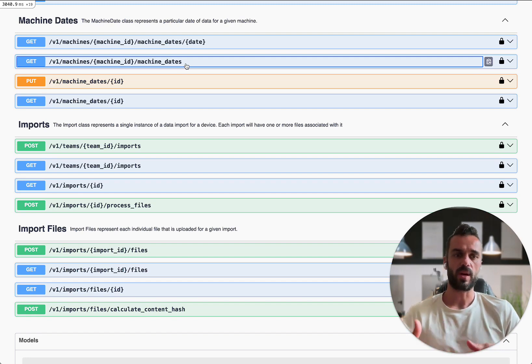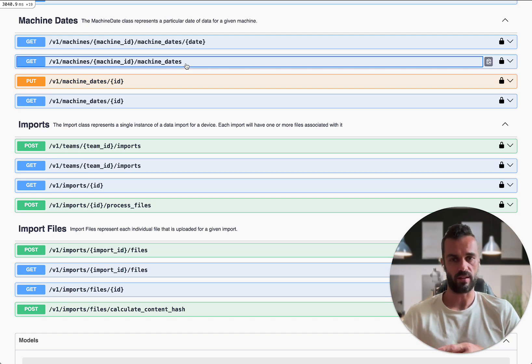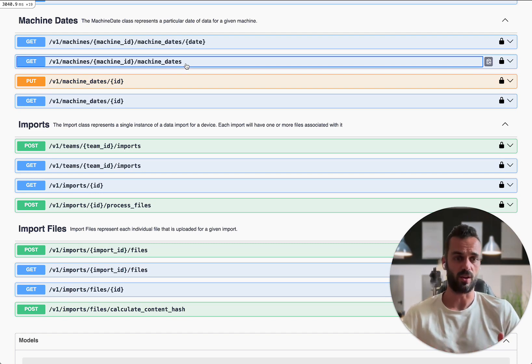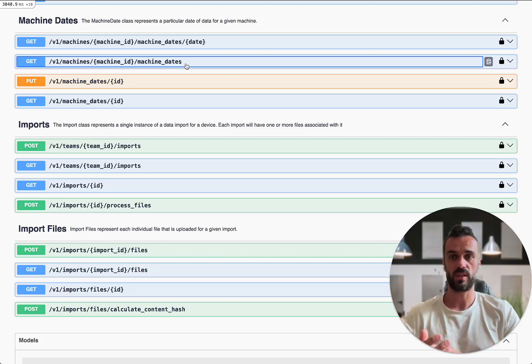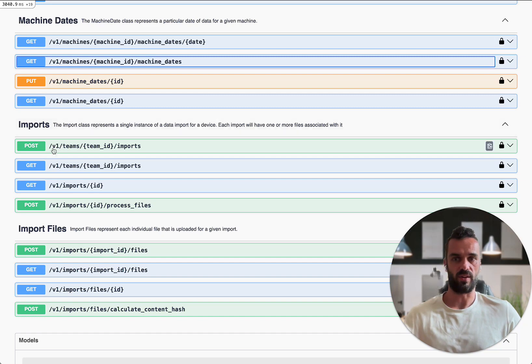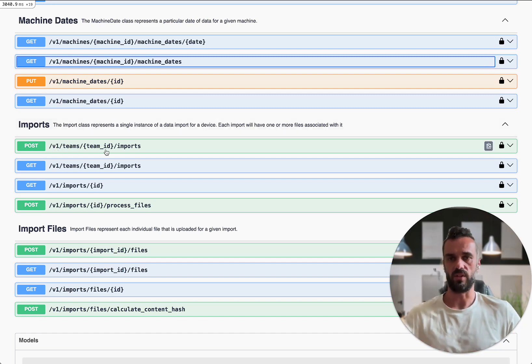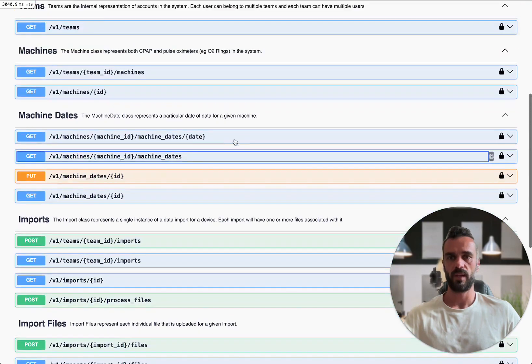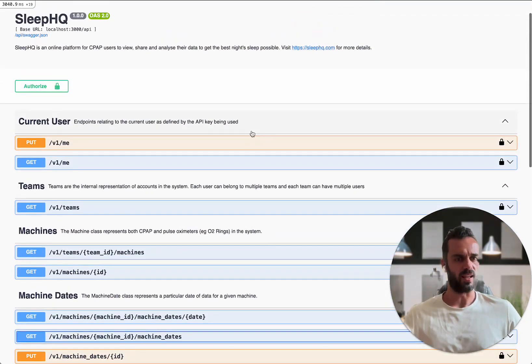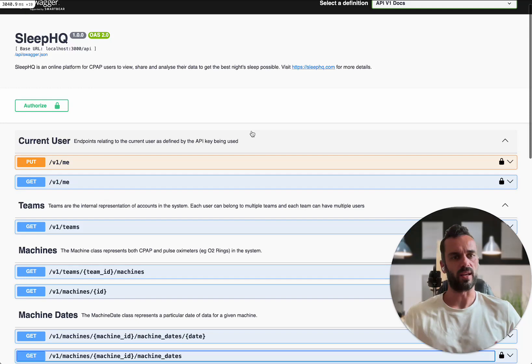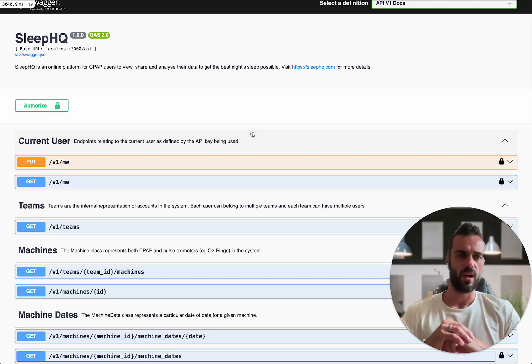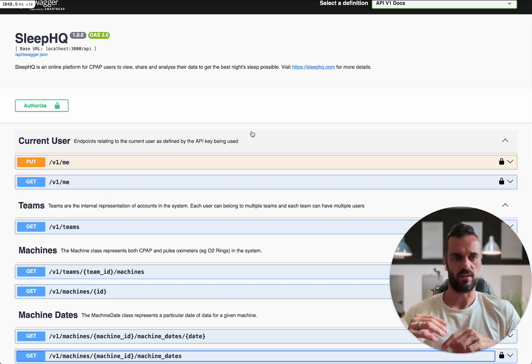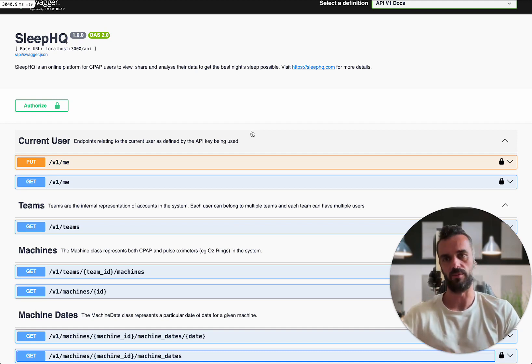As people are starting to use it, if there are things that you want to be able to do, and we don't yet have an endpoint to give you the data that you want, then make sure you're letting us know because this is going to be a work in progress. But this is the V1 API endpoints. You can see that's why everything is kind of prefixed with V1 in here as well. We'll be adding to that over time as we go. It will probably stay as V1 if we're just adding extra endpoints because it's not going to break any integrations that people make. The only time when we would update the version on the API is if we're making breaking changes to it that we're not going to be backwards compatible.